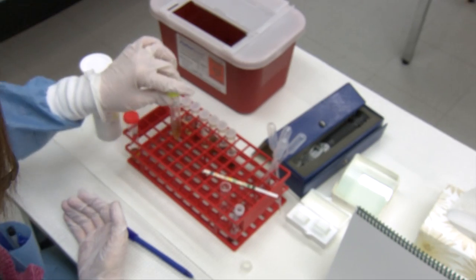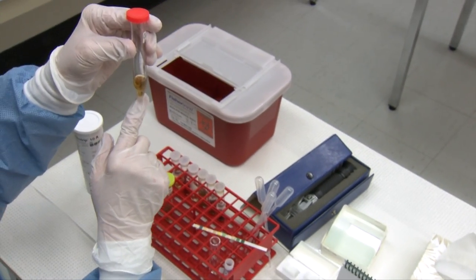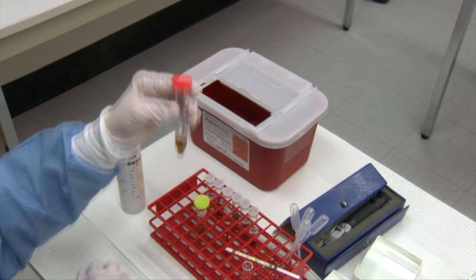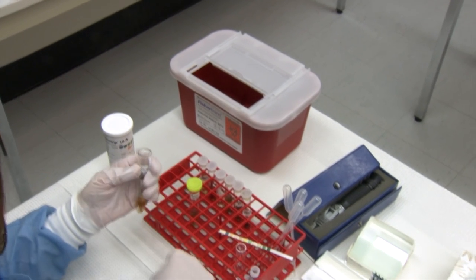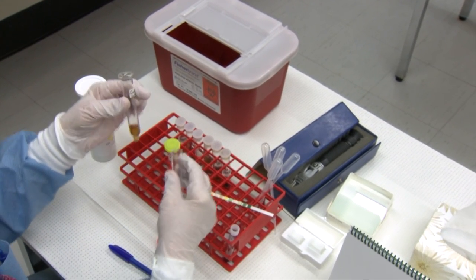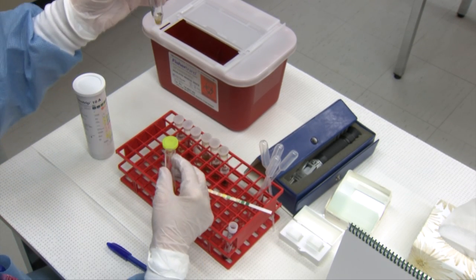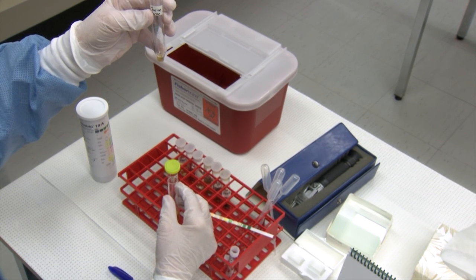Today we have one that we've already centrifuged, so you can actually see there's some sediment at the very bottom of this tube. Once you have your urine centrifuged, you want to pour off the supernatant — this is done in one quick tilt forward and tilt back. The tubes are shaped to leave the correct amount at the bottom for your sediment.